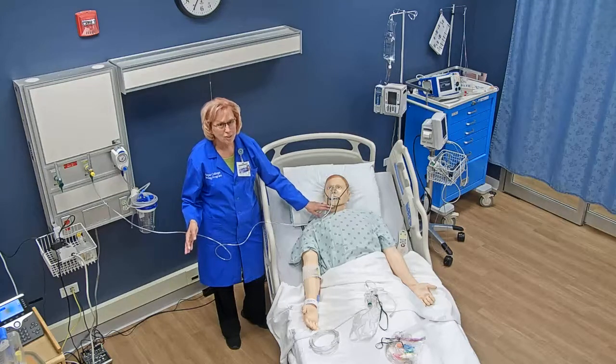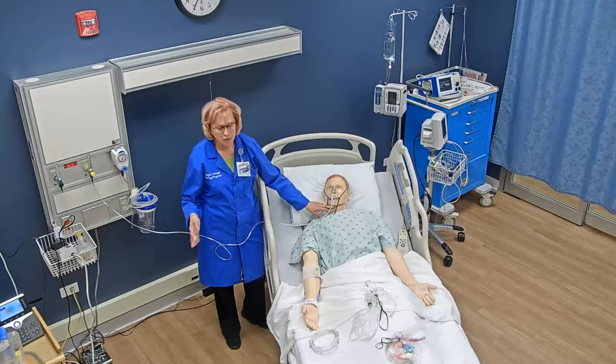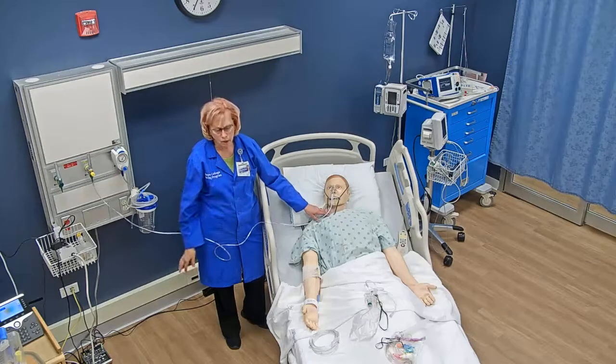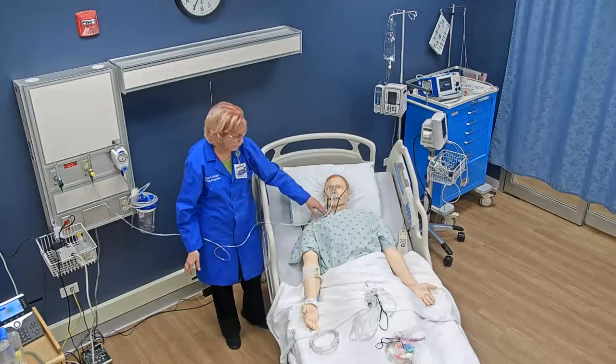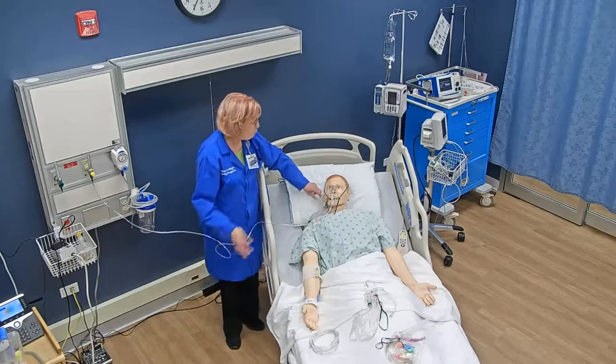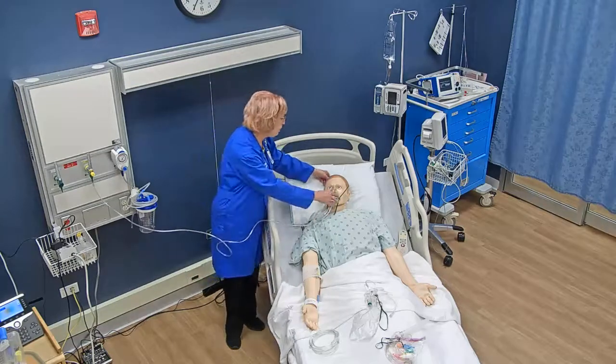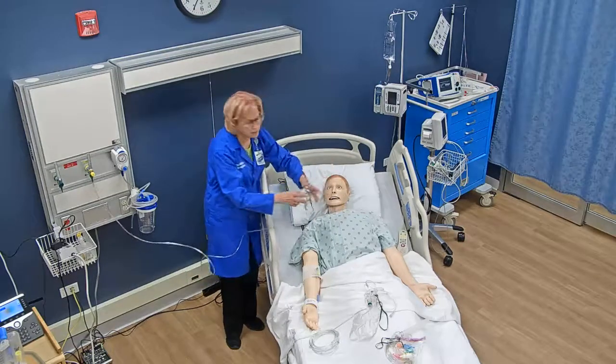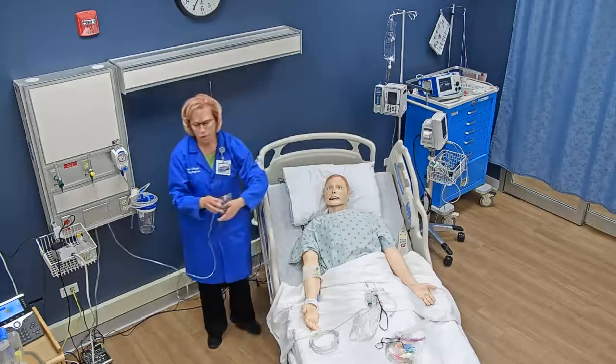Patients don't like wearing a mask — they much prefer wearing a nasal cannula. But you do sometimes see the simple mask used in pediatrics, and occasionally with an adult.